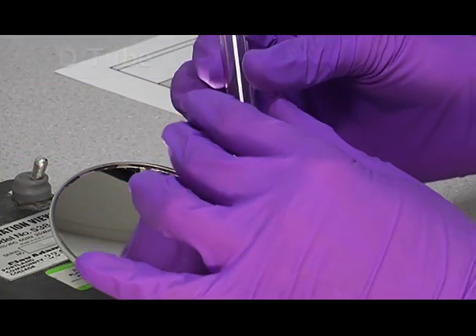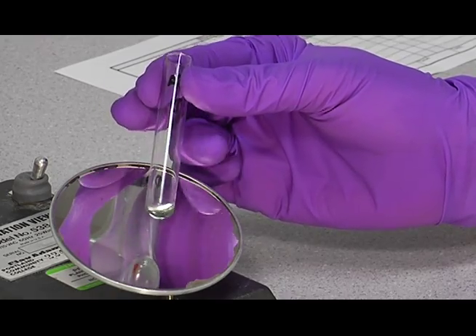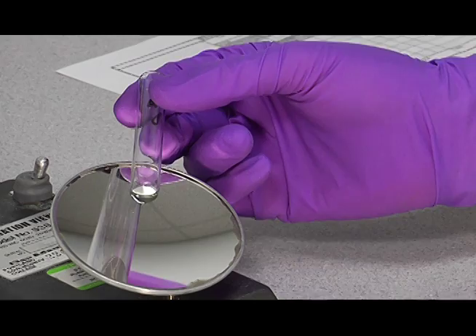Then after adding the AHG and spinning down for 30 seconds, then you'll take your tubes out of the centrifuge, bring them over to the agglutination viewer. You want to roll the button up in the corner like this, and just tap. And you can see the cells streaming off nice and smooth here. You can see we've lost some cells in the washing process, but we have enough to read, and so that's a nice negative.